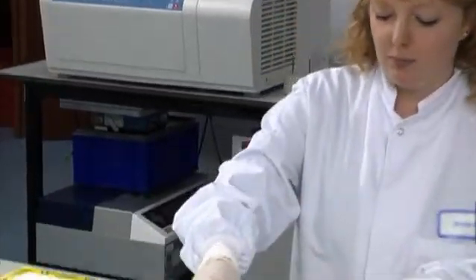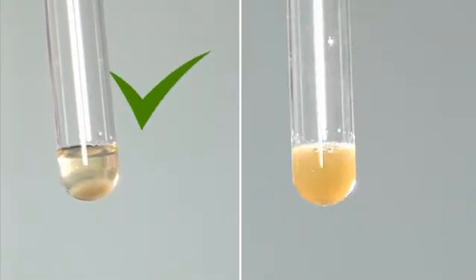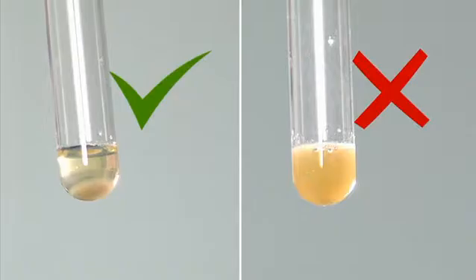After centrifugation, the supernatant of the sample must be clear. When handling delipidated samples, take care not to disturb the pellet. If the pellet becomes disturbed or the sample is cloudy, repeat the centrifugation.